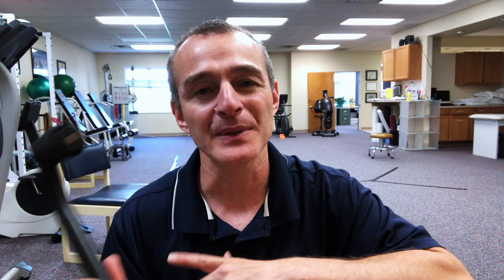The two main things I encourage everyone to understand: first, the cane is not here to hold you up or support your body weight — it's just to touch the floor or the wall, just for touching, not for supporting. Second, most commonly you use the cane on the side opposite the surgery. So if you had a right total knee replacement, you put the cane in the left hand. I'll explain why. If you absolutely can't use it on the opposite side, I'll show a strategy to use it on the same side without throwing off your gait cycle.